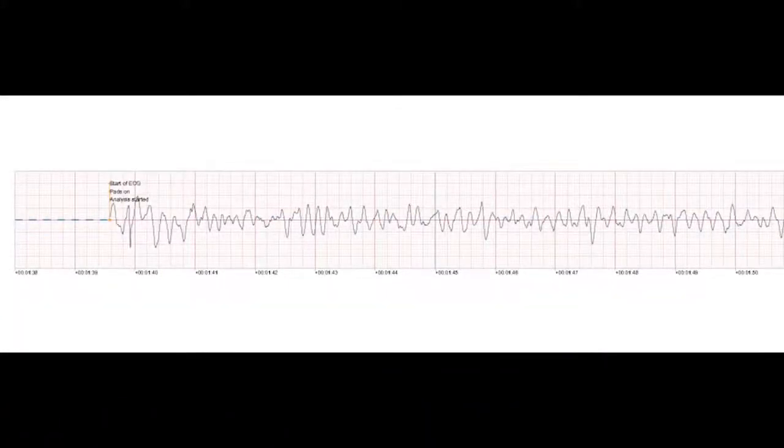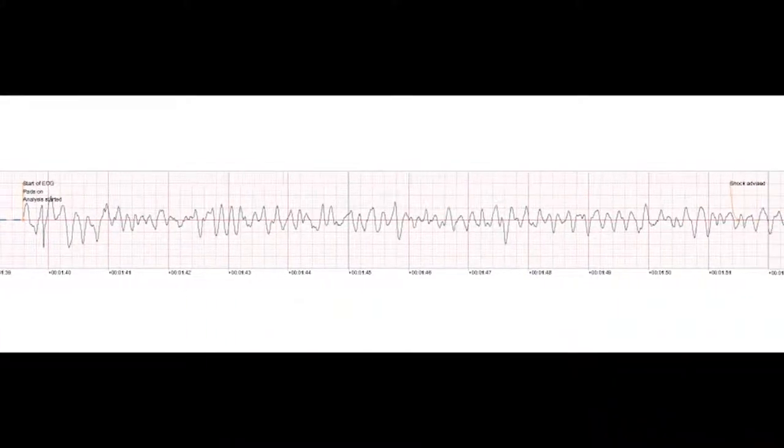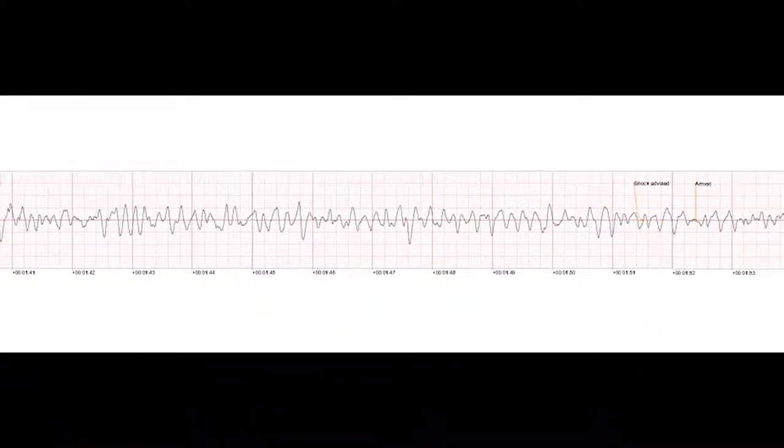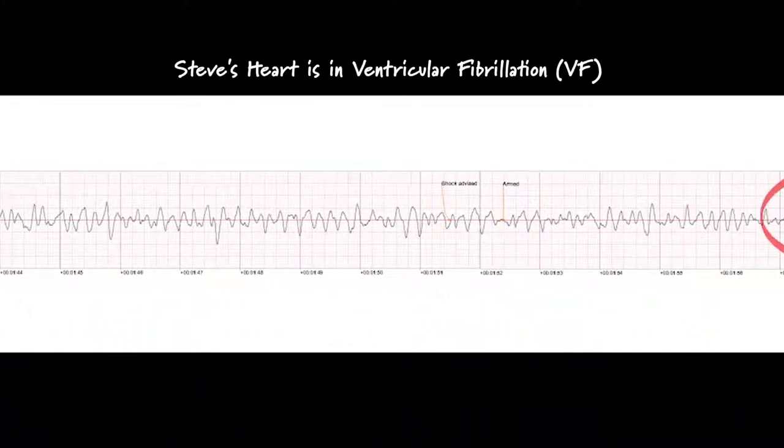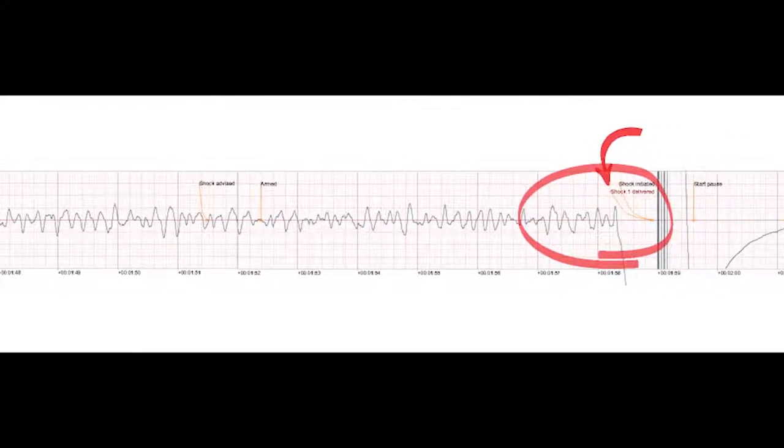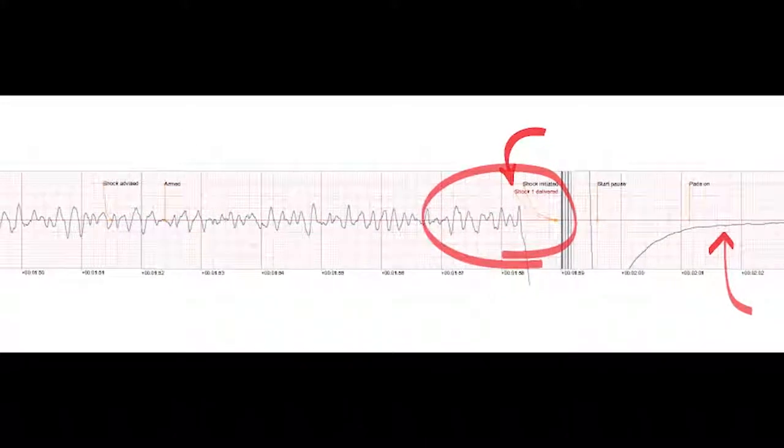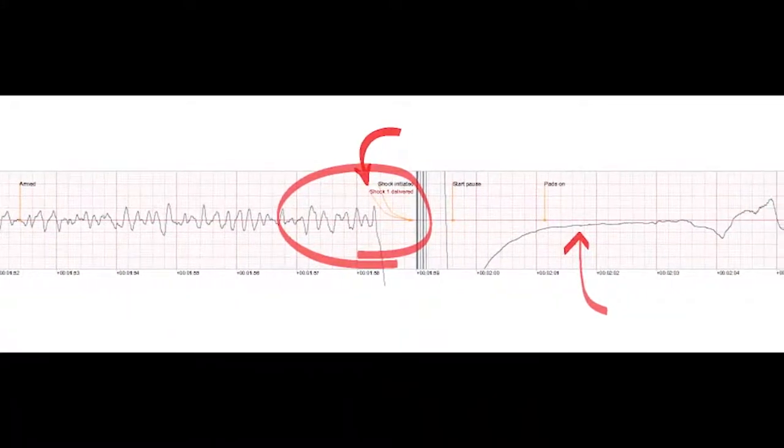Analyzing. Shock advised. No one should touch the patient. Press the flashing orange button now. Shock delivered.